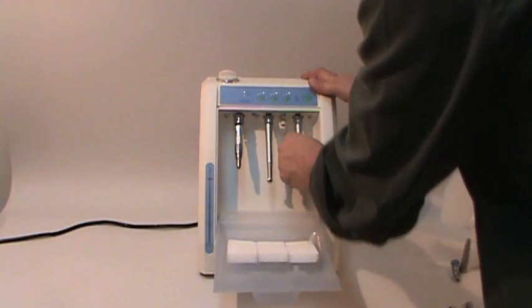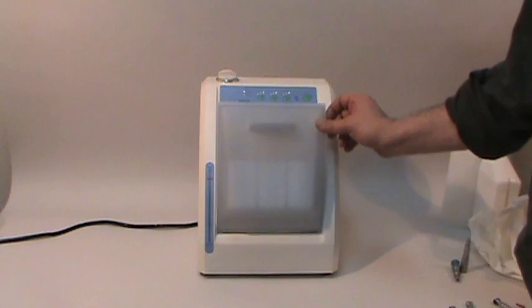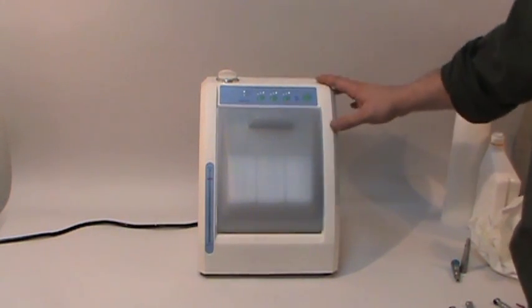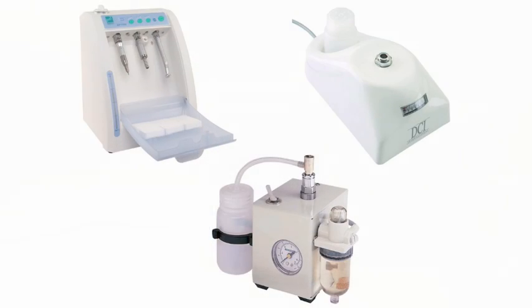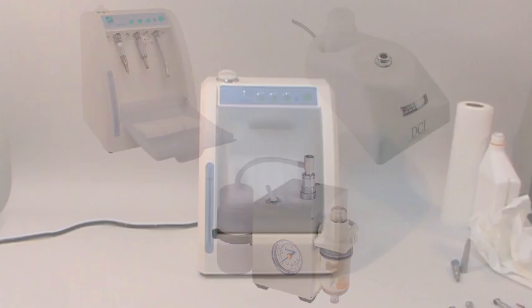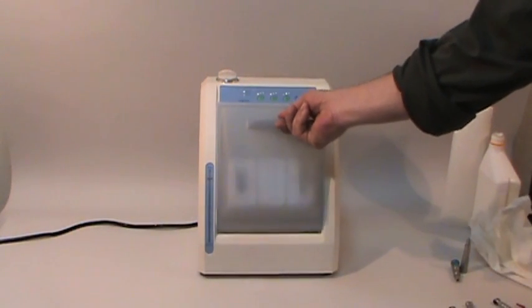For best results we recommend the use of a dedicated flushing and lubricating system. We offer several systems that are easy to set up and that do an excellent job of cleaning and lubricating your handpieces as evidenced after a cycle in the pads from the flush systems that you see here.